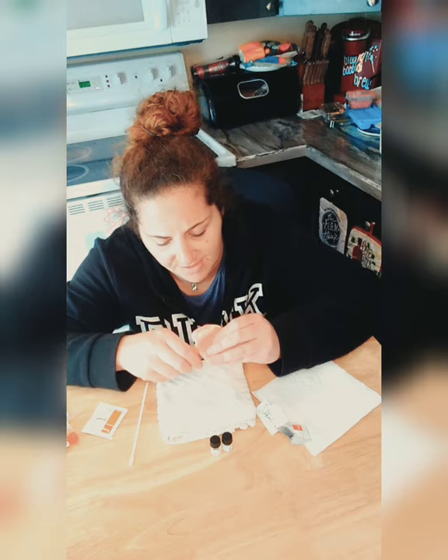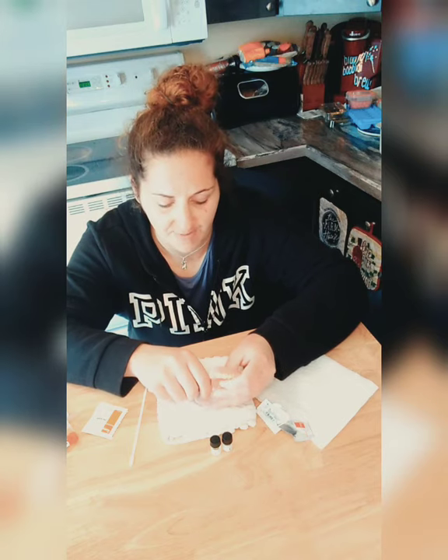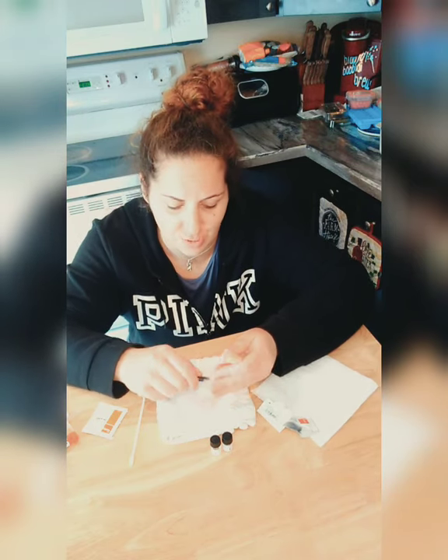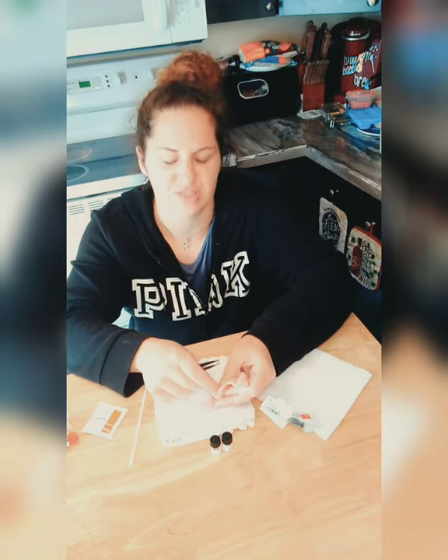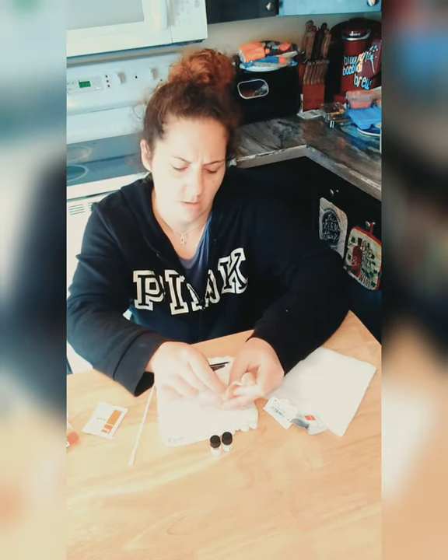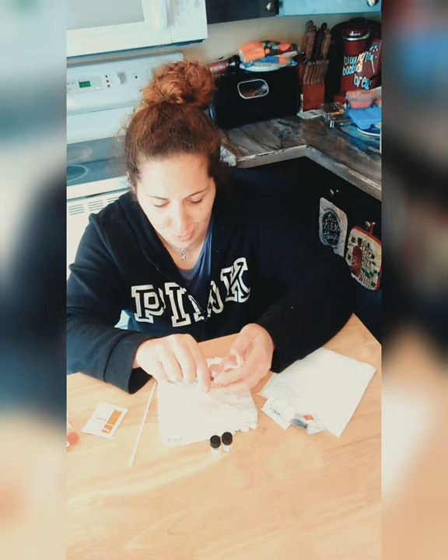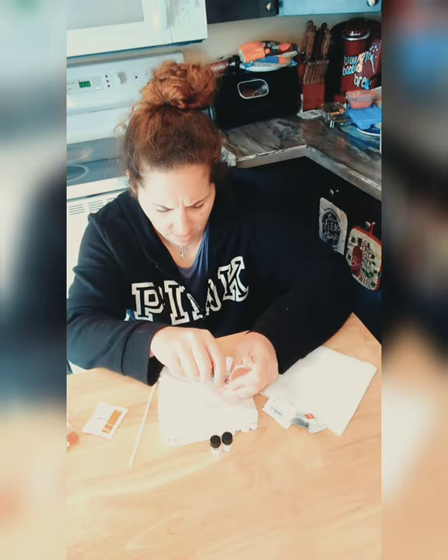When you only have a thin coat of Denture Fit or any soft reline, it's going to take a minute. The hardest soft reline I ever took out literally took me two days, and I still didn't get it all — I just put new stuff over it at that point. I'm trying to grip but my fingers are so swollen right now. I'm allergic to the sun and heat — that's small fiber neuropathy, along with subacute lupus and a bunch of other things — so the tweezers are ripping it instead of pulling with me.